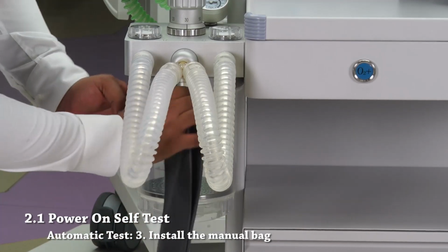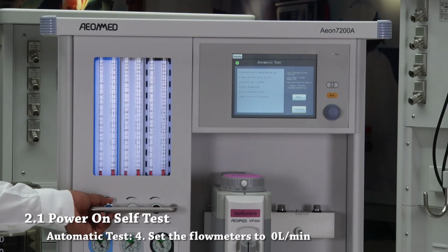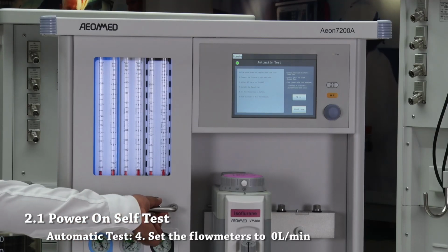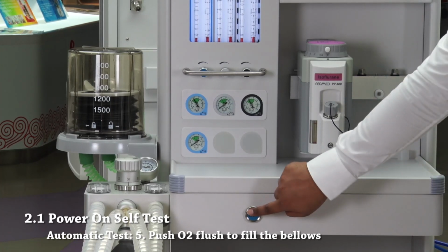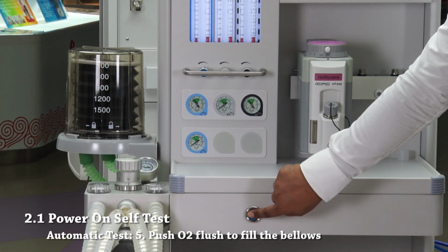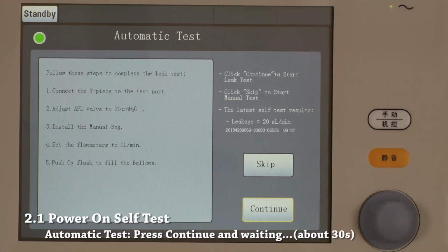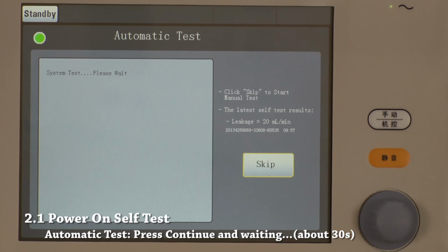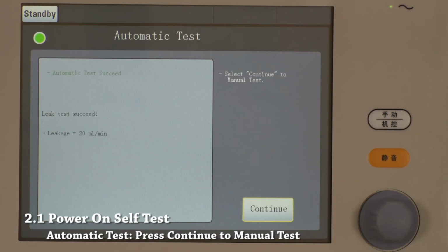Step 3. Install the manual bag. Step 4. Set the flow meters to 0 liters per minute. Step 5. Push O2 flush button to fill the bellows. Press continue and wait for about 30 seconds until automatic test succeed is displayed on the screen.